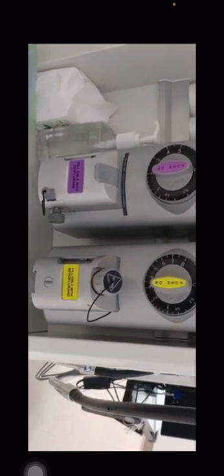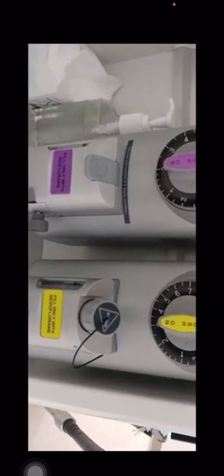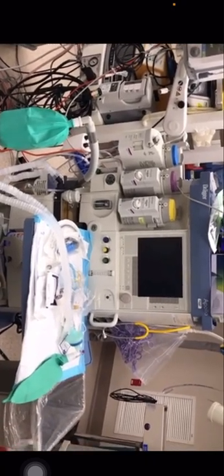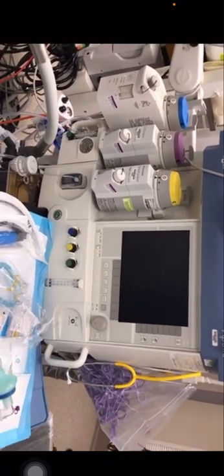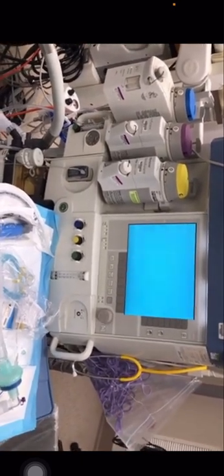The vaporizer works by controlling the vaporization of the anesthetic agent from liquid and accurately controlling the concentration added to the gas stream. Its design accounts for varying ambient temperature, fresh gas flow, and agent vapor pressure. Inhalation agents such as nitrous oxide, halothane, isoflurane, sevoflurane, and desflurane are commonly used for induction and maintenance of general anesthesia in the operating room.